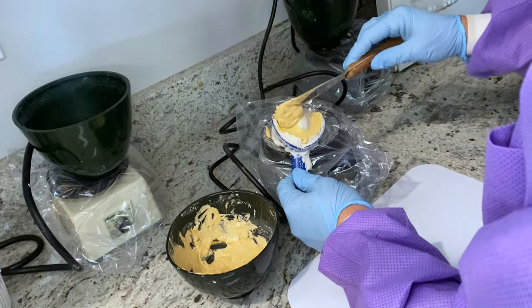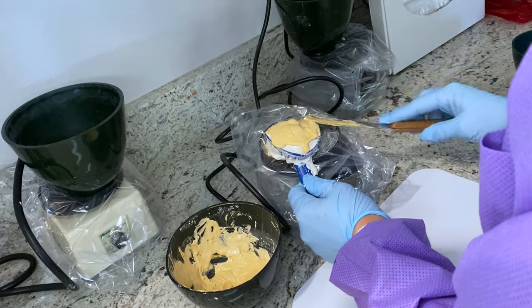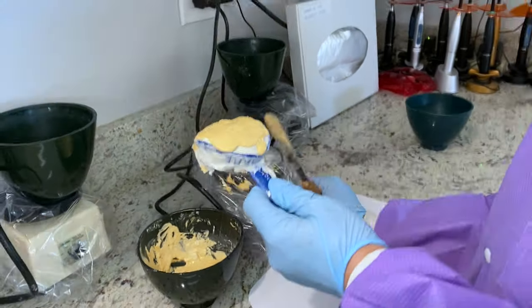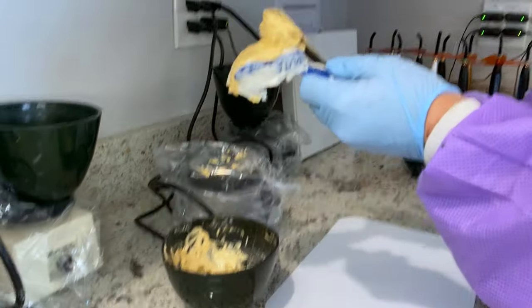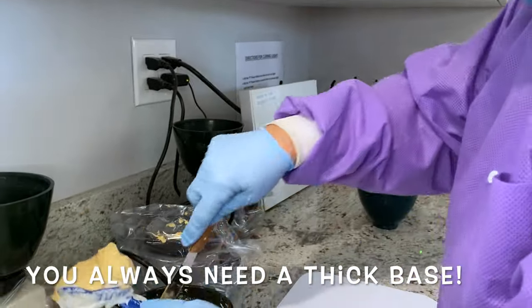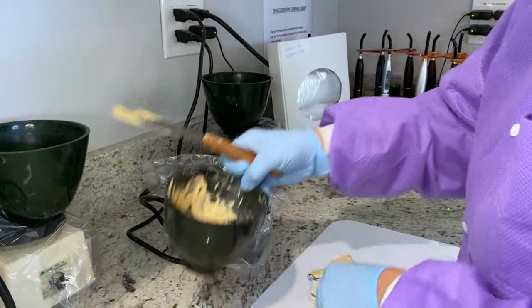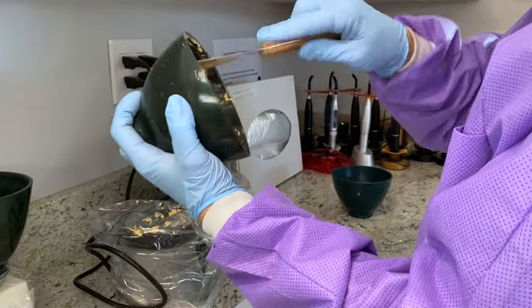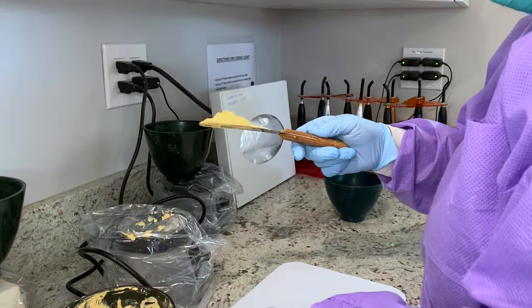You can use bigger increments and just fill it in. Take it off the vibrator and build it up like a cupcake or an ice cream — use all that you can so it's not wasted.